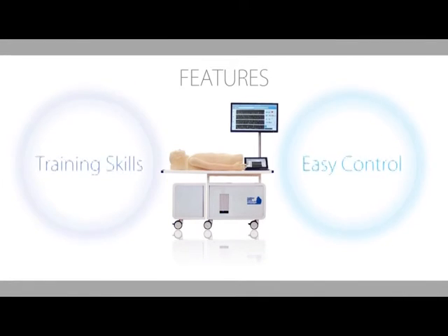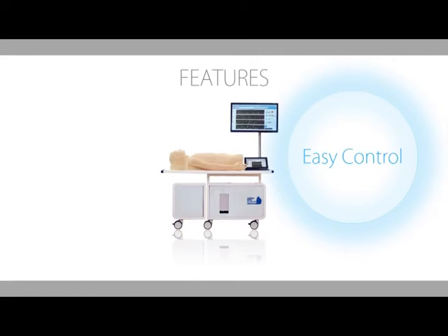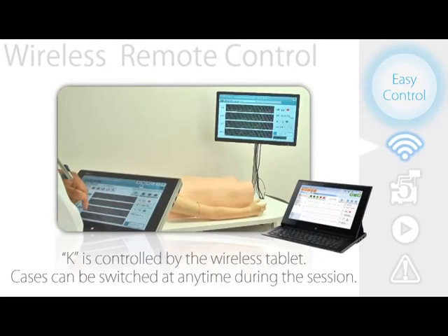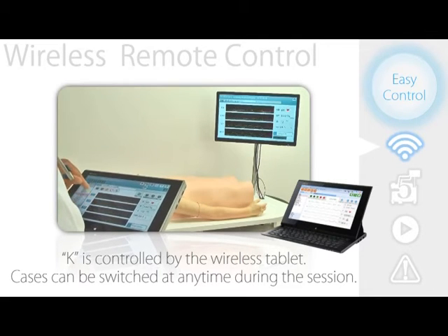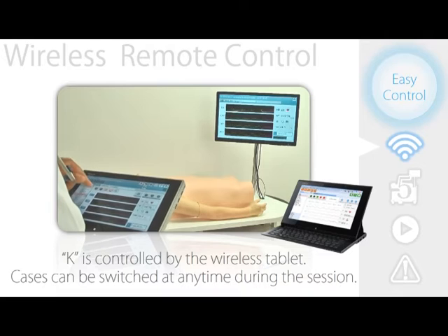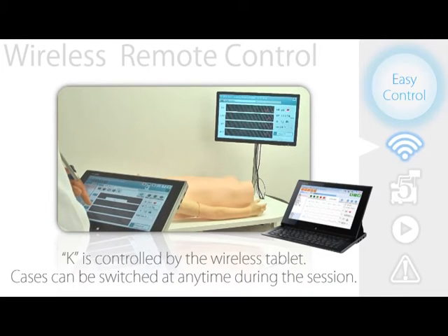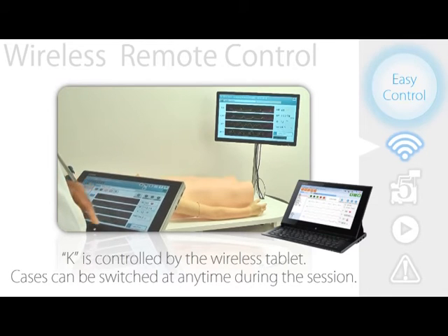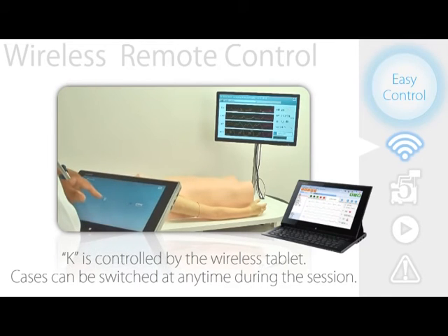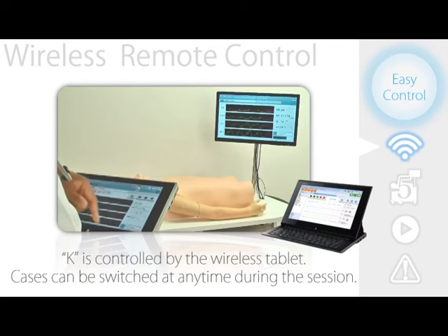Kei's second main feature is its easy control system. The primary controller of the Kei is a wireless tablet connected to the main display monitor. The patient cases can be switched at any time with the touch of a button, and specific settings such as the display, volume, and speed of heart rate can also be customized to the user's liking.